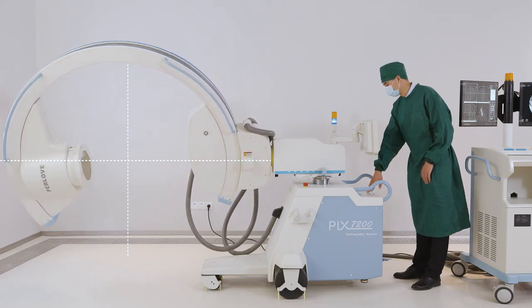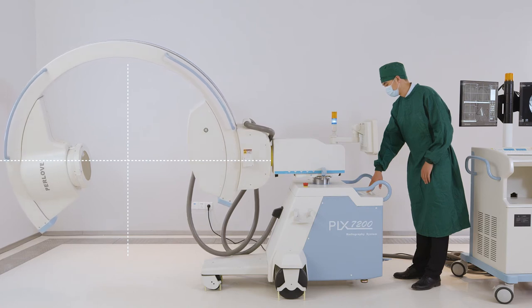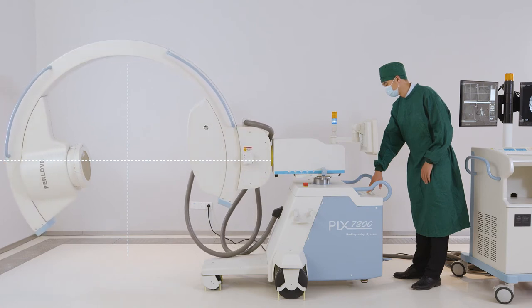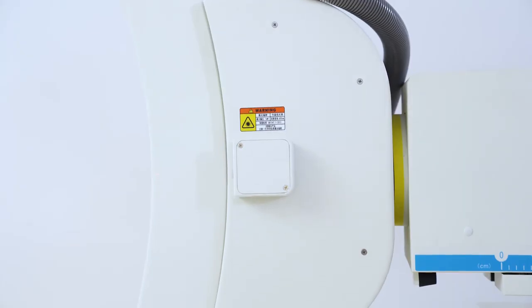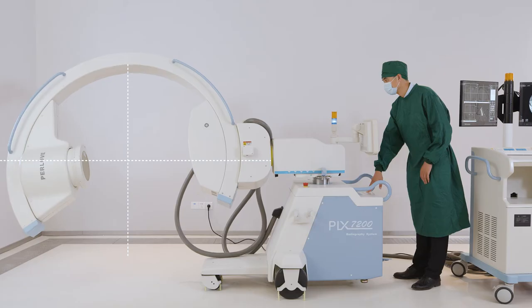The 190 degrees of C-arm rotation design ensures that there is no dead angle when you process the photography. Based on the isocenter design.